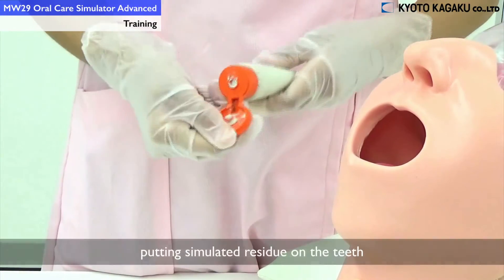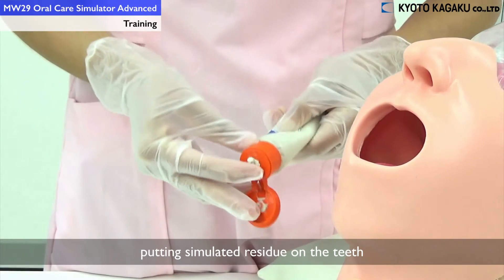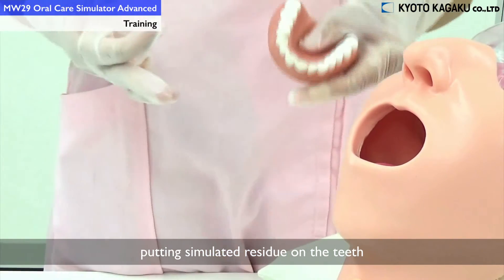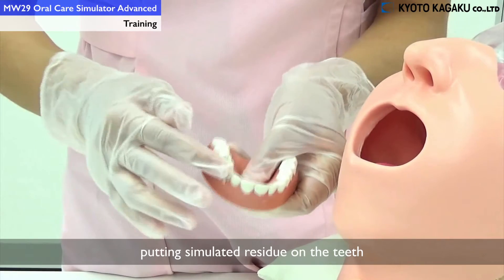You could apply the simulated residue on the teeth like this.